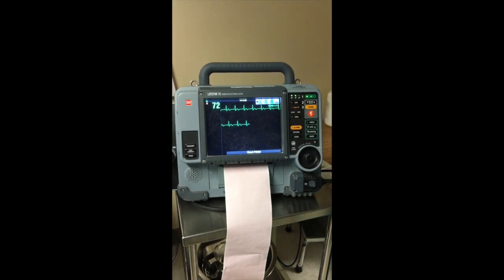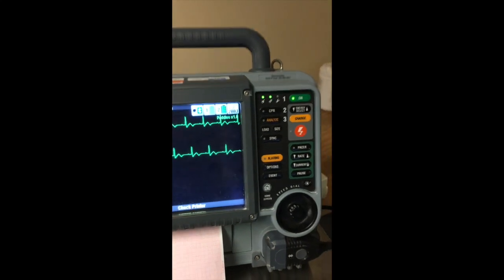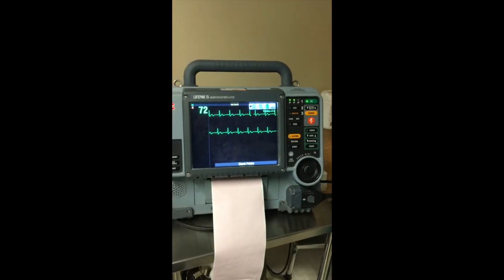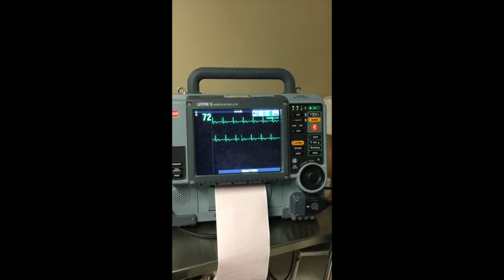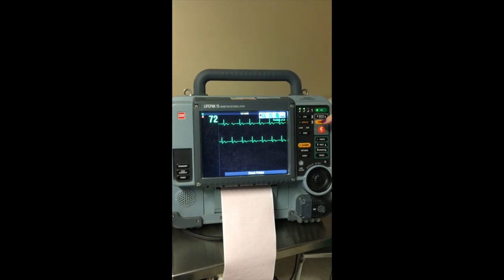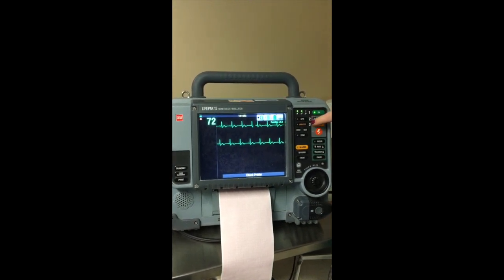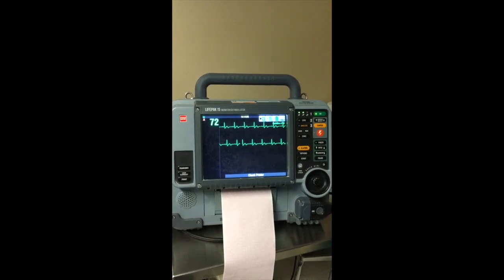And this feature is super important because we had a cardiac event at our hospital in the last couple of years where no one knew how to get it out of AED mode, and they were trying to see the rhythm, but they couldn't see the rhythm because it was in AED mode. So if you have one takeaway from today, it's to remember to push the number 2 to get it out of AED or push lead. So now we're in a manual mode.